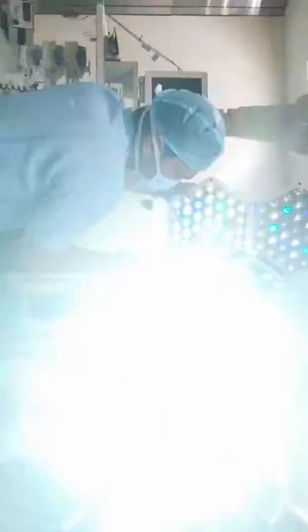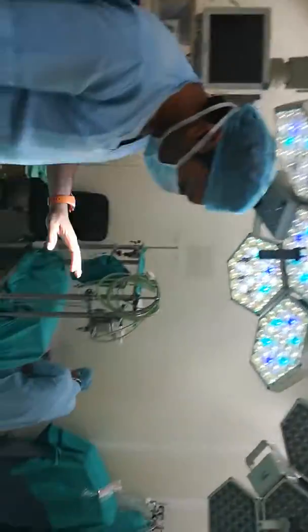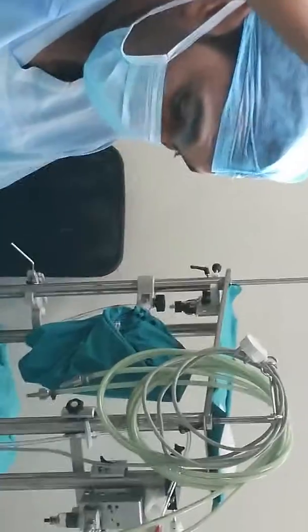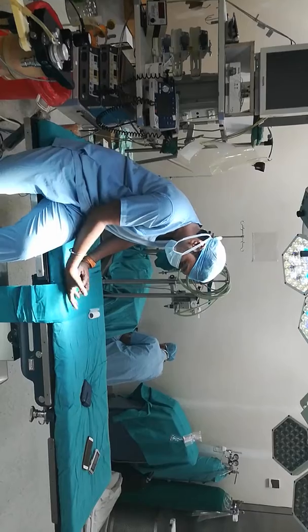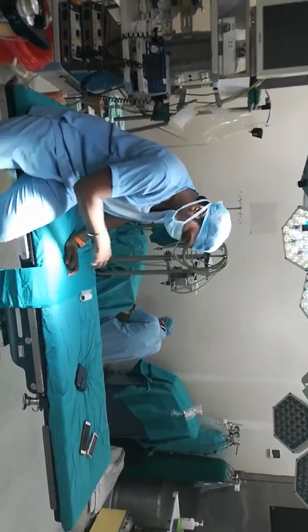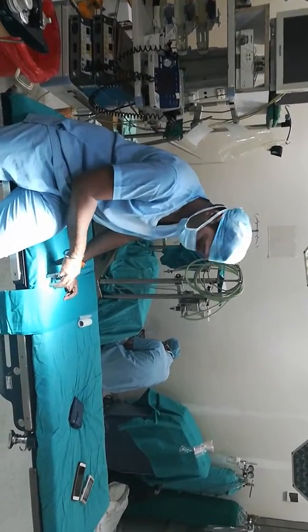Now we will switch it on. You can see over here that this ring is glowing and here it is focused. When I put my hand up over here there is no shadow. When the surgeon is working, he is not getting his head shadow on the patient's body part, and the light is focusing on it so he can operate and see every part of the organ.